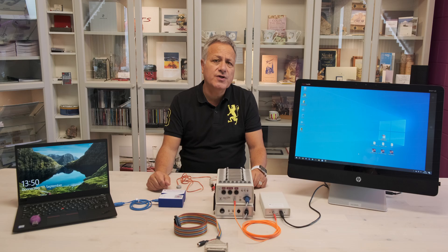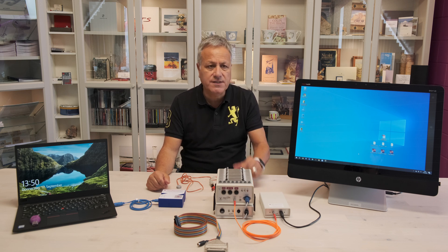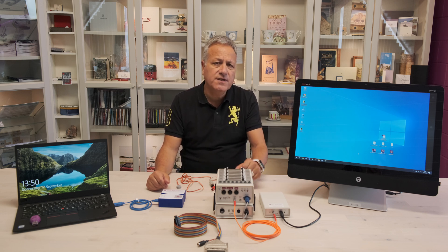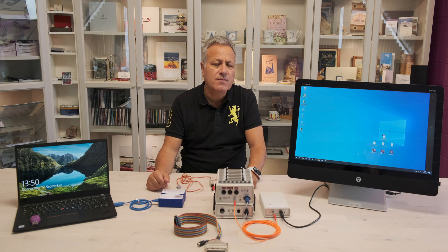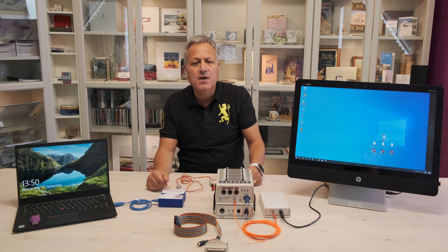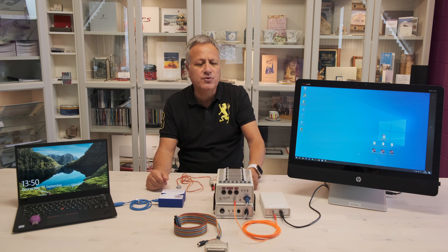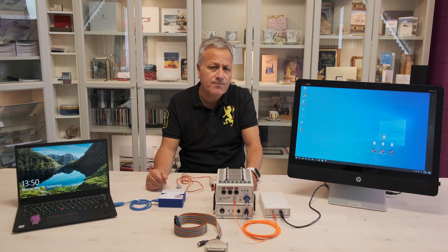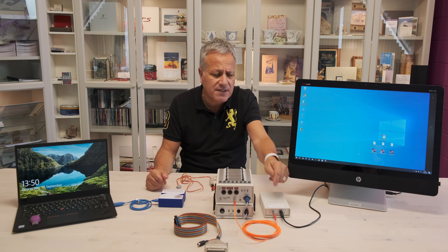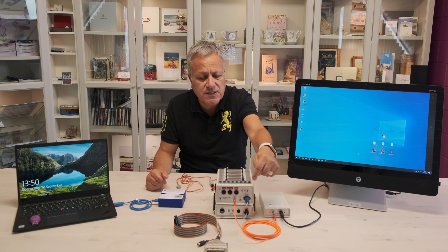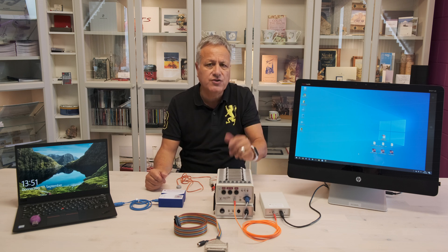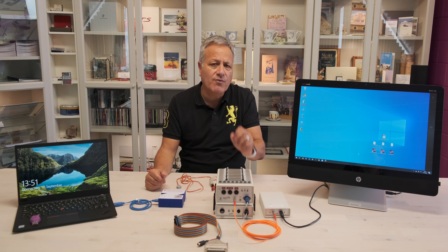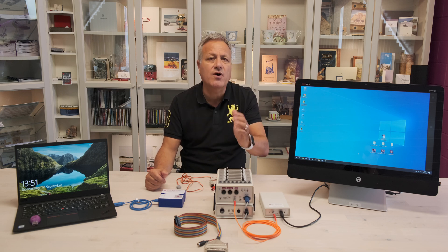At the end of this demonstration we will be able to show three acquired traces on our PC. One trace will be the trigger that we send straight into the USB receiver box. One response will be the ERG response that we acquire from the photocell itself, which is sampled at the same speed as the EEG and EXG. The last of the three traces will be the splitting of the trigger going into the USB receiver box, which we split into the ERG channel 2. The timeline will be around the onset of the actual trigger and we'll define that as time zero.